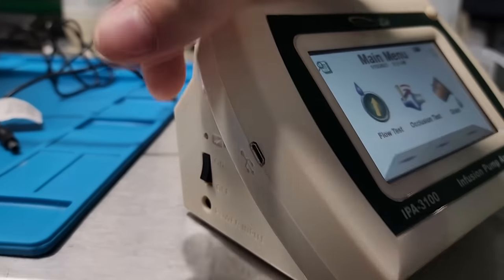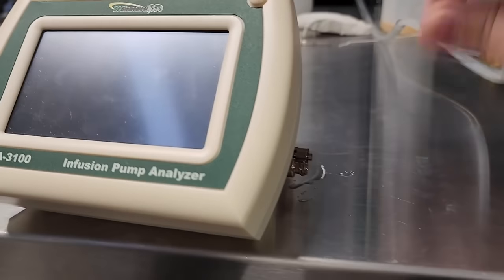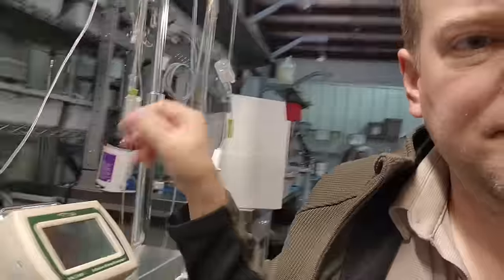And mind you guys, it's been running on battery. I shut it off. Take a look at that. That is it. That's all she wrote on it. Okay guys, so that was the IPA-3100. And it's a great little infusion pump analyzer. Definitely the device that I would want because it's battery powered. And it's single channel. And if I'm going into a, let's say a small surgery center, they have maybe 20 infusion pumps total. This is the device that I would probably want because it's battery powered. Just make sure that you maintain it. You drain the fluids out of it every time. Make sure that battery stays charged. And mind you, what you see right here is not the production version. It's pretty close. But if there's any software changes or anything, don't hold it against me or this video. This is a pre-production. And I was very honored that they chose me to do a review on it and open feedback in case there's anything that needs to be changed. So far it looks like it's pretty good.